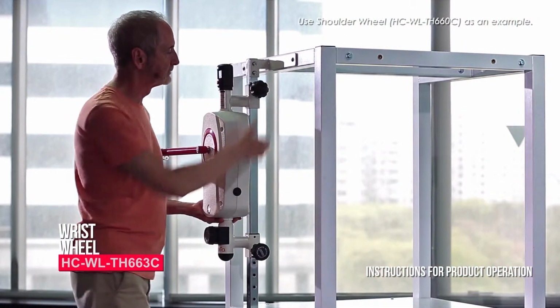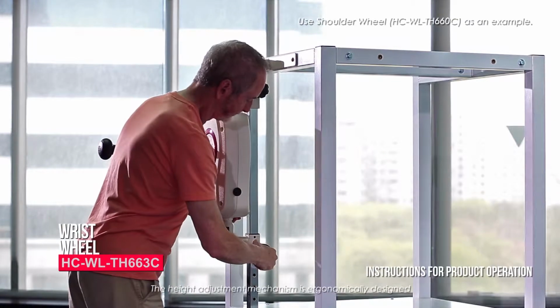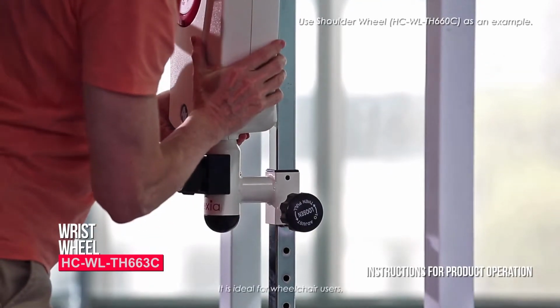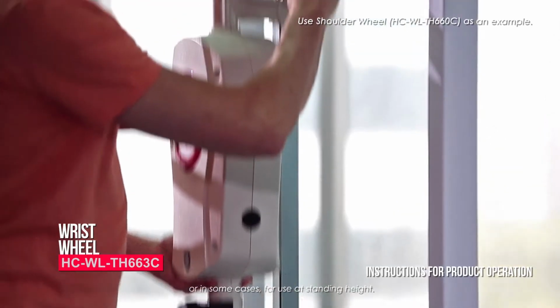Instructions for product operation. The height adjustment mechanism is ergonomically designed to allow the user to position the height of the wrist wheel to a comfortable level. It is ideal for wheelchair users or, in some cases, for use at standing height.